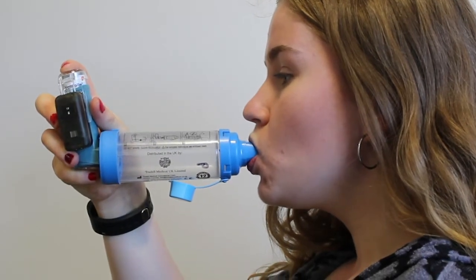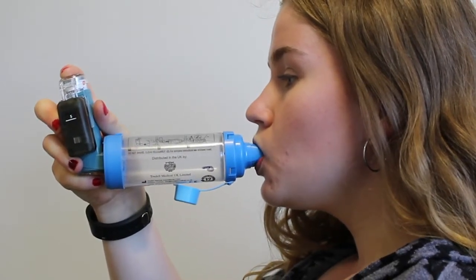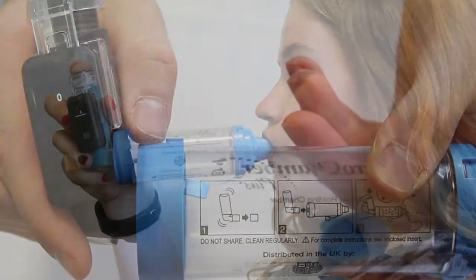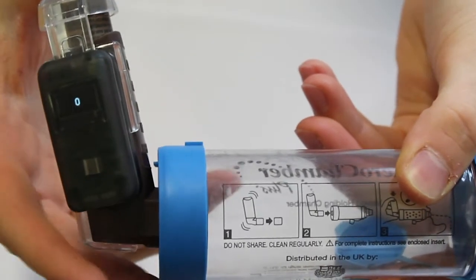Press the cap down to dispense the dose. Take as many breaths as instructed by your clinician to inhale the dose through the spacer.